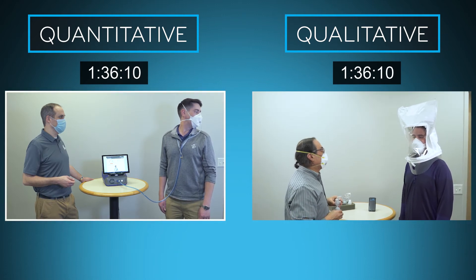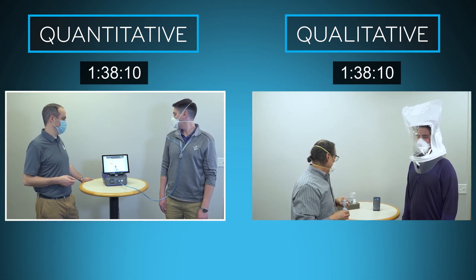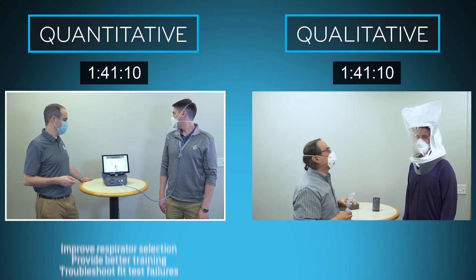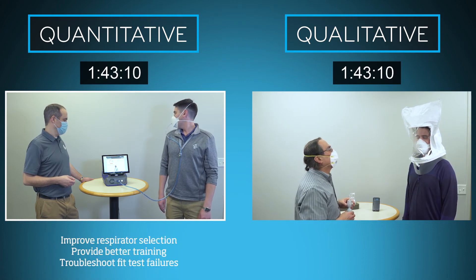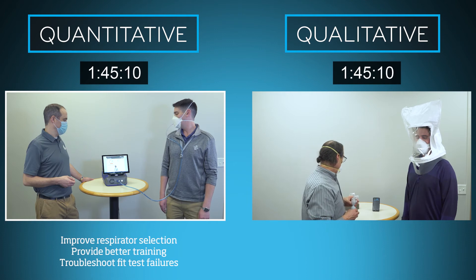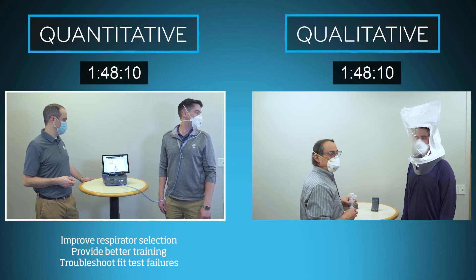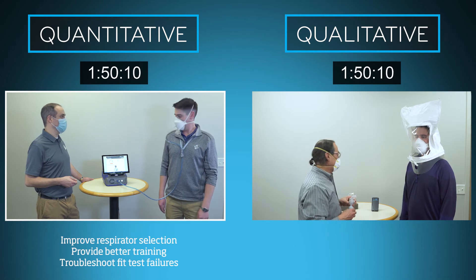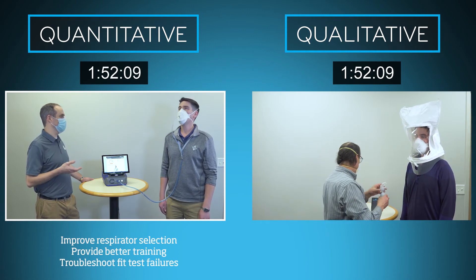It's important to note that quantitative instruments can provide assistance beyond the fit test. The PortaCount instrument allows you to use real-time measurements to help better select respirators for employees, train them how to don and adjust them for maximum protection, and troubleshoot any fit test failures that may occur.